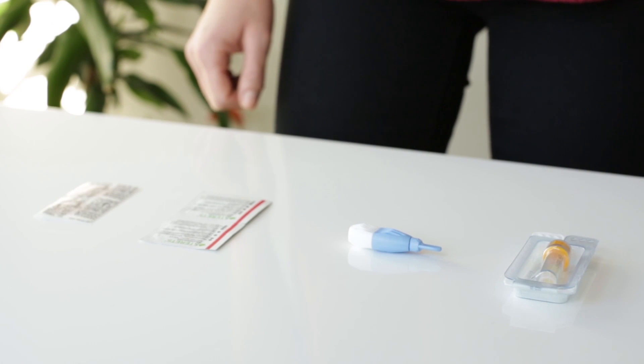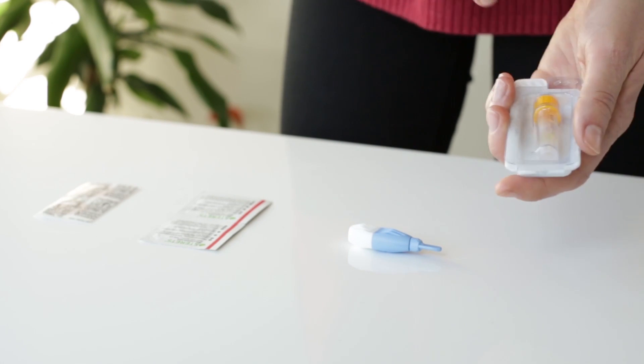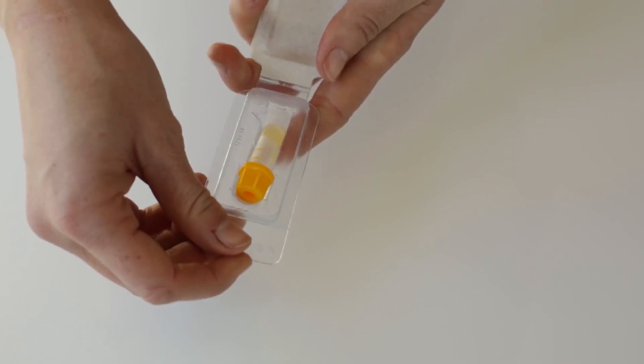Find a clean flat surface and lay the test kit out. Keep standing up with your hand below your waist.